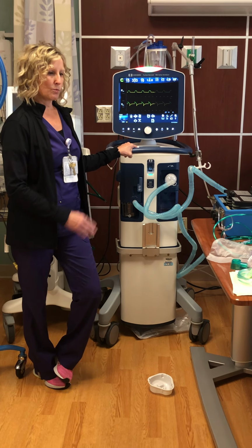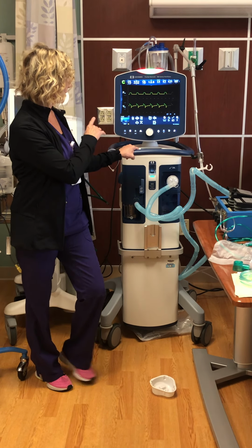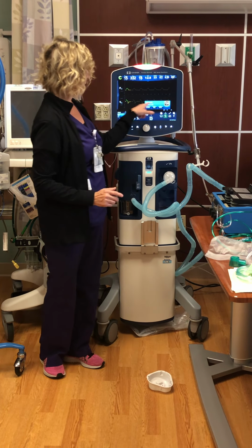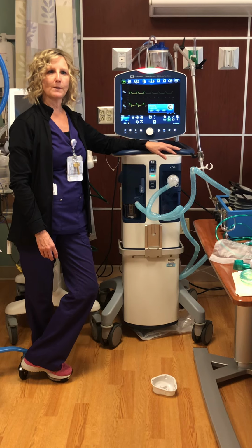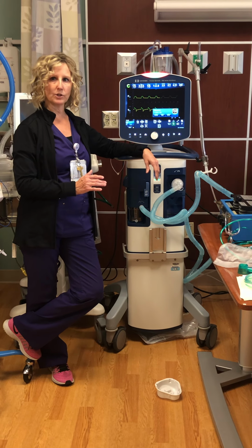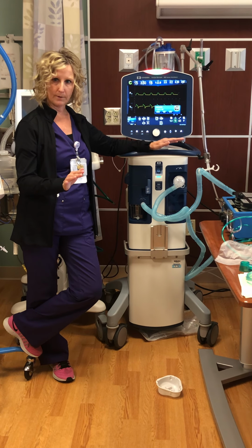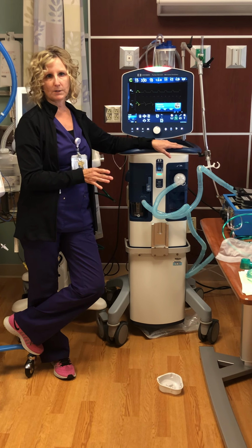The other thing is with vents, if you're having some problems, if your saturation is low and you're hitting your 100%, your 2-minute 100% oxygen, unless it's something that you've been suctioning or you've been moving that patient and they're desatting and there's a specific reason why they're desatting, you want to give them a little time to recover. Once that 2 minutes is up, if their oxygen starts coming back up, we're good. If it's not, give a call to your respiratory therapist right away.